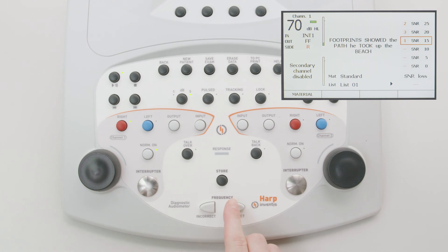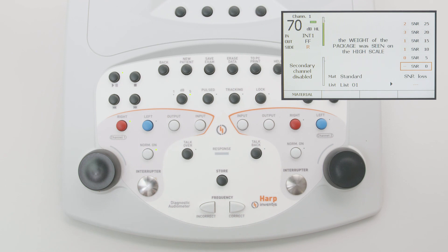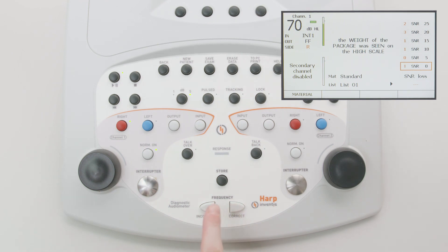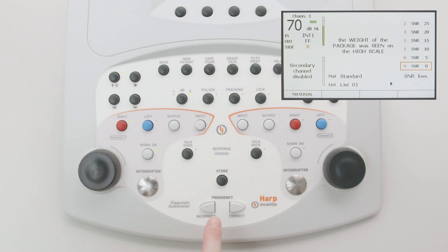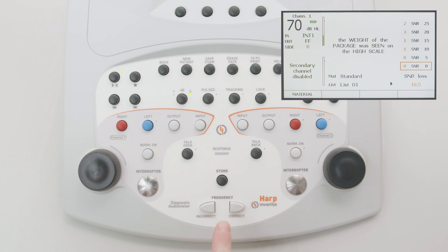At the end of each sentence it is possible to assign the score of that sentence. To increase the score, the correct button should be pressed; the incorrect key is used to decrease the score. After all six sentences are scored, SNR loss can be estimated and saved using the store button.